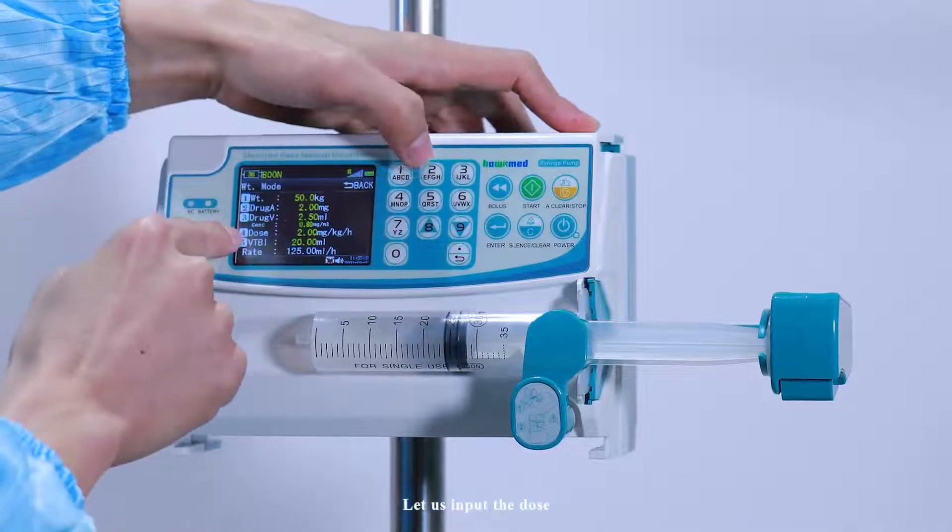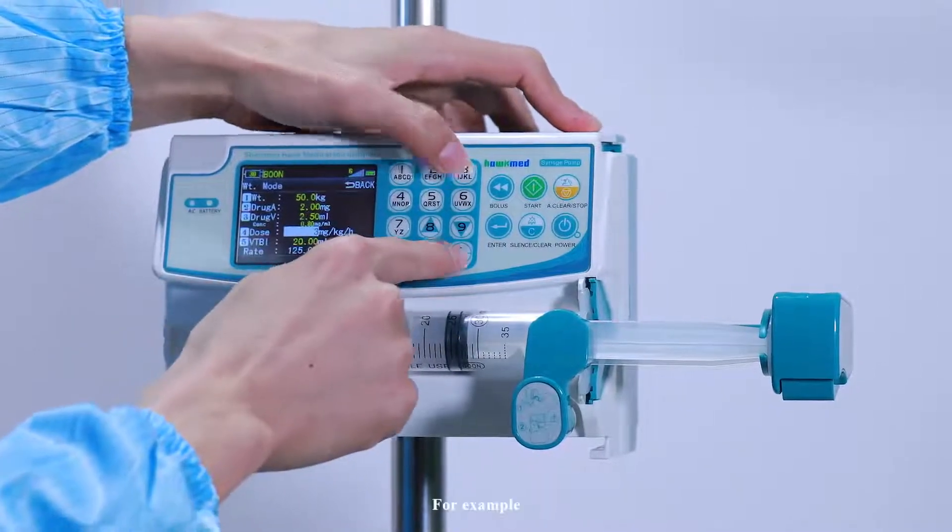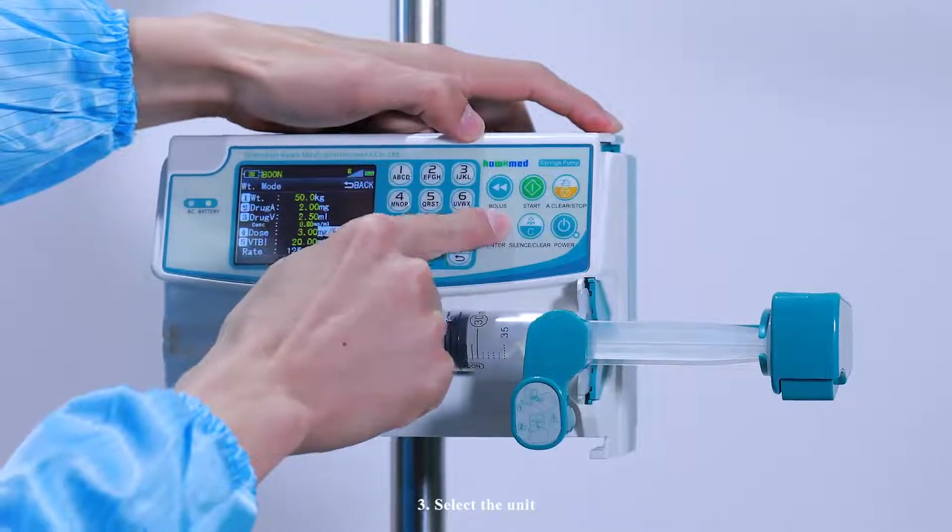Let us input the dose. For example, 3. Select unit.